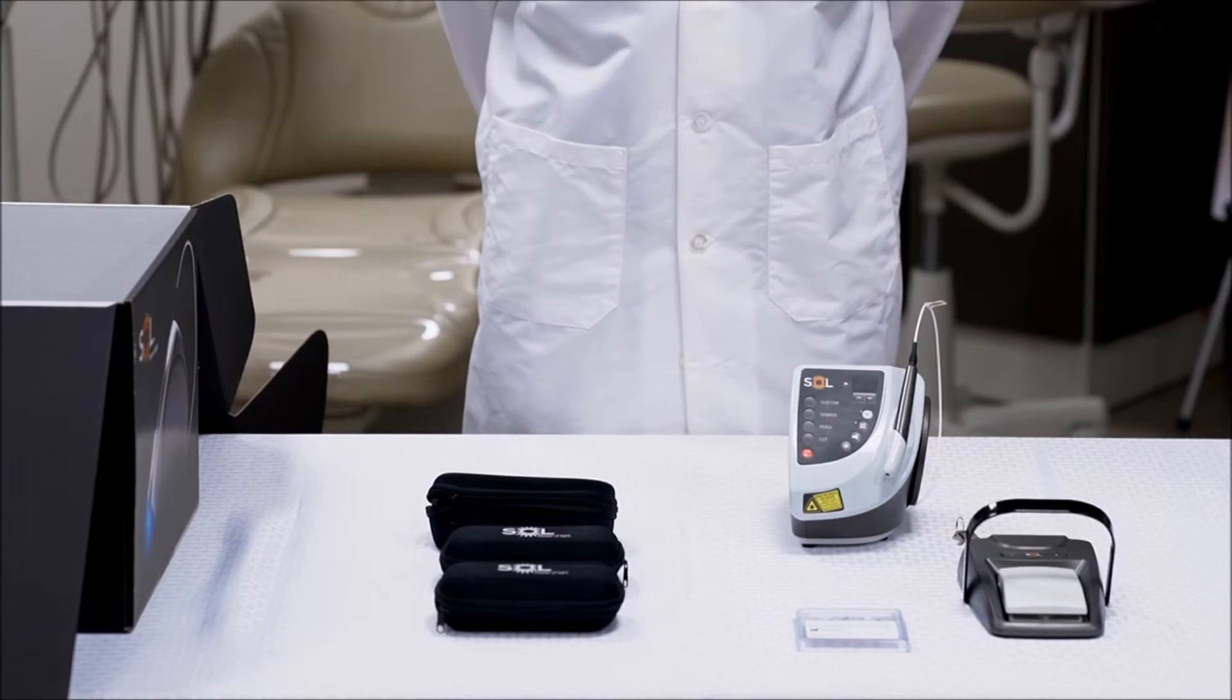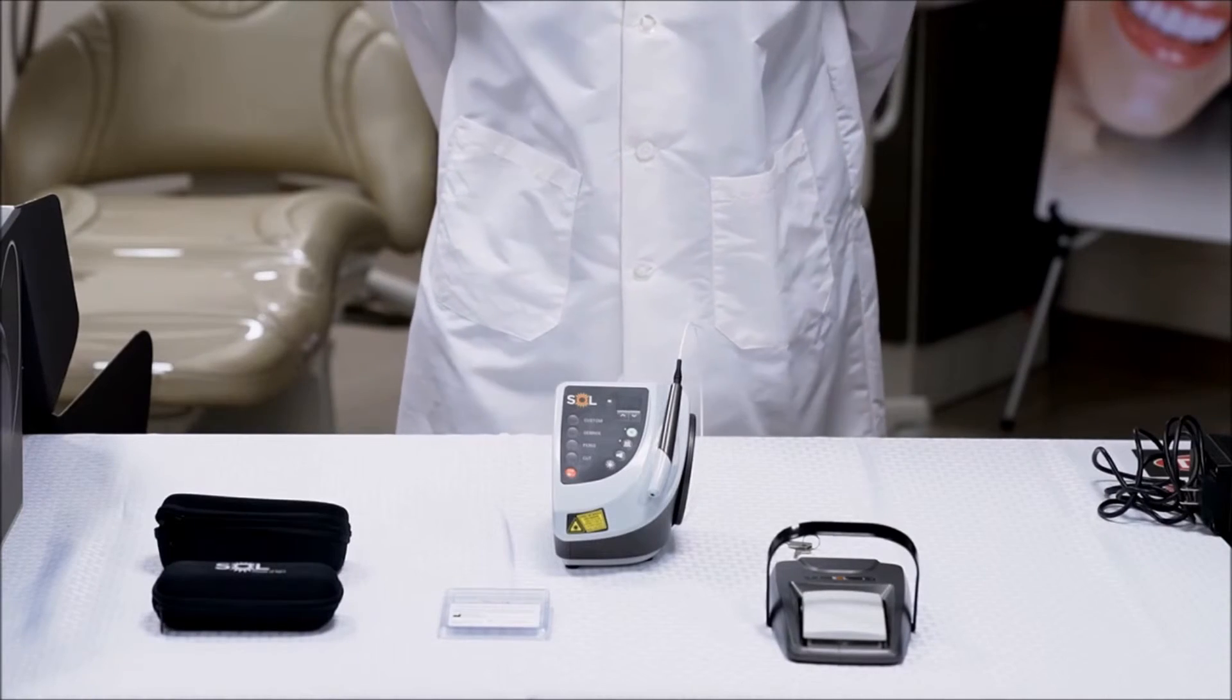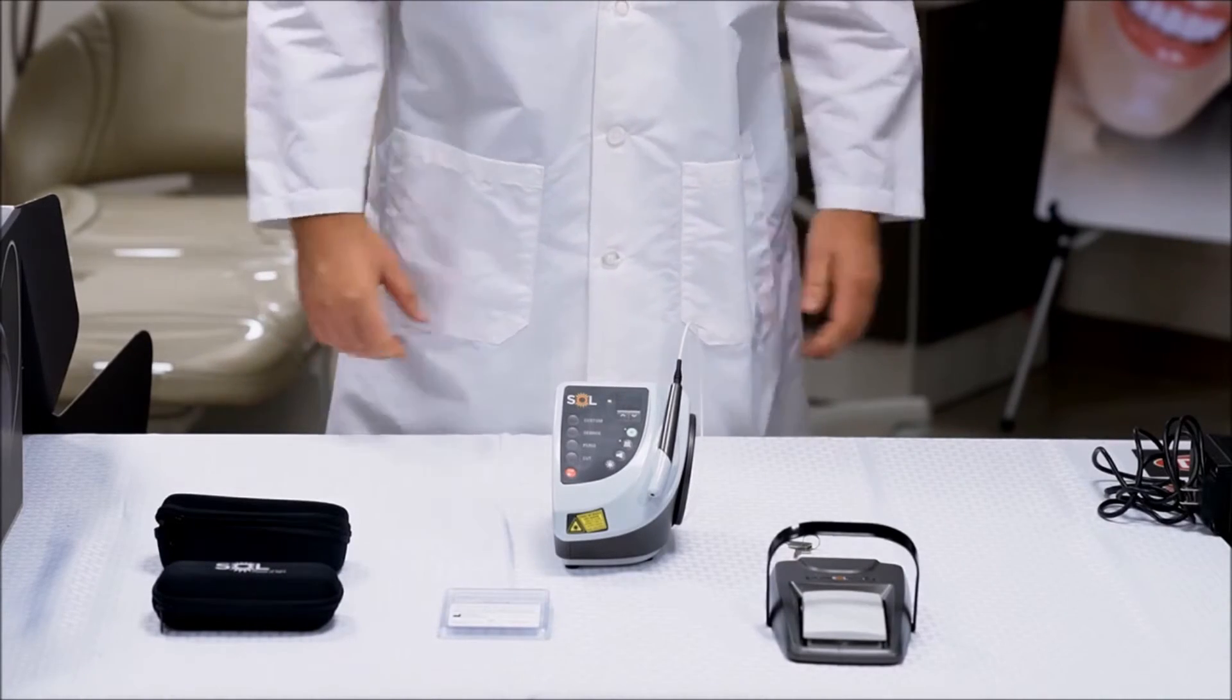And there you have all of the components for your Sol laser. Now that your laser is unpacked, we are going to turn the laser unit on.